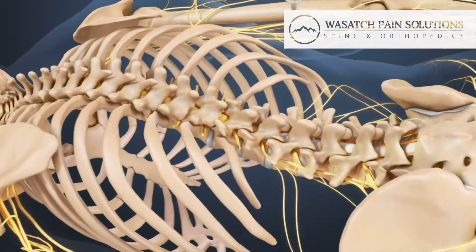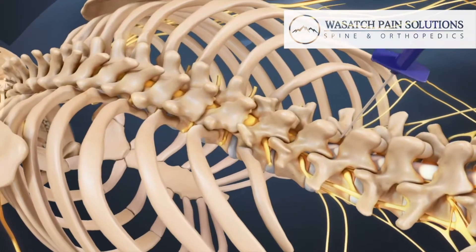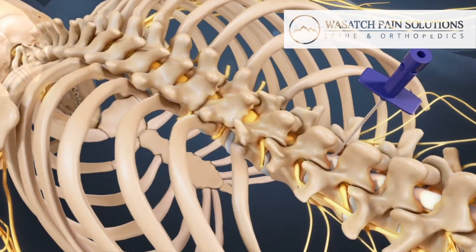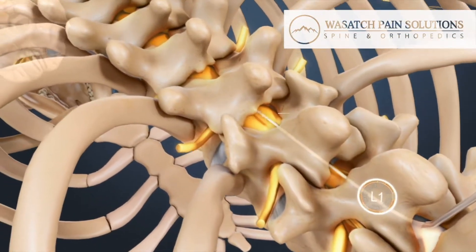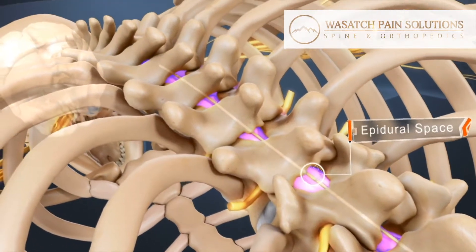Next, thin wires with electrodes attached, called leads, are inserted into the space surrounding the spinal cord via a thin, hollow tube. The area where the leads are placed is called the epidural space.